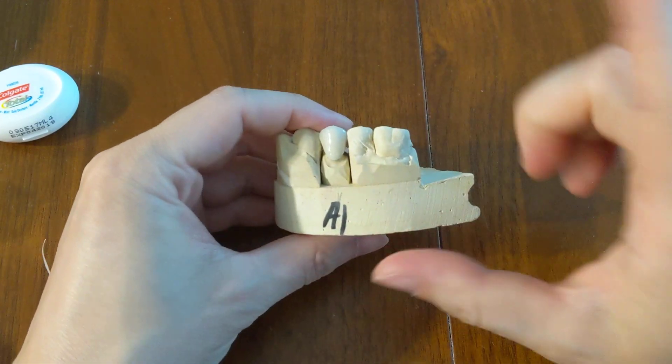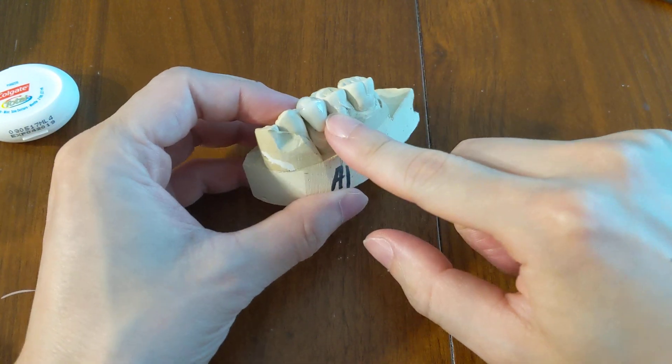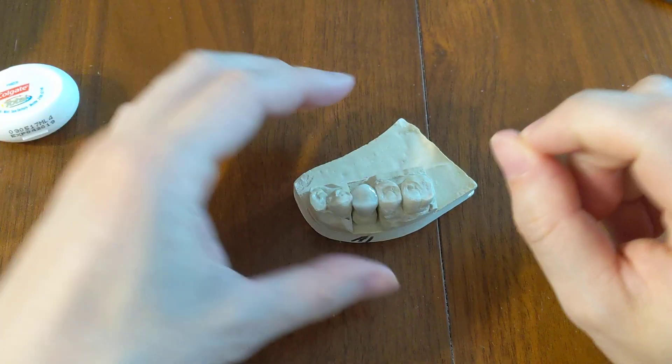That's the number one mistake to avoid. Remember, after you floss through, you want to pull out to the side. Do not pull back up.